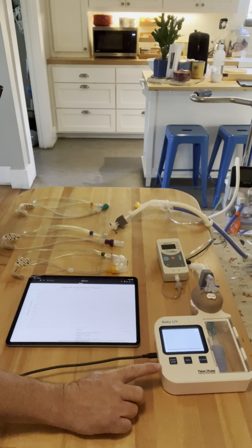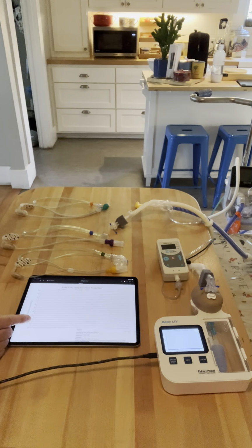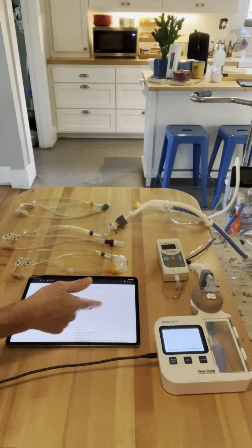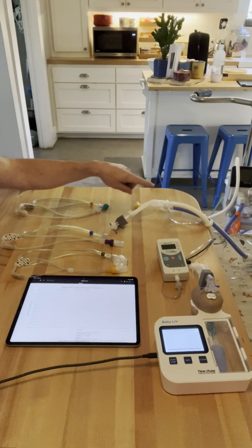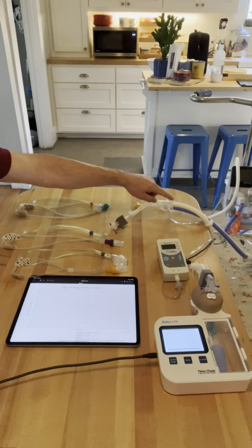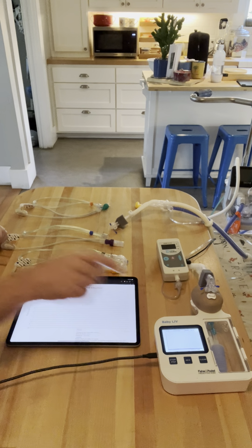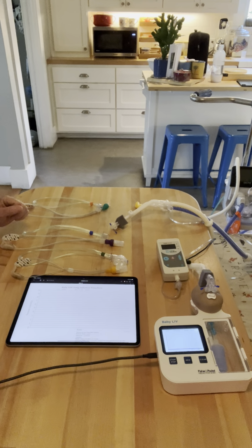I have my test baby lung here that's going to be reading pressure for us on the screen. On my iPad, these are Bluetooth together so that you can see the pressure yourself more effectively. I brought with me a manometer that measures actual bubble CPAP, since I'm using a bubble CPAP as my bias flow system. And that's going to read the pressure, obviously, on the circuits. So that will tell us what the pressure buildup is in the circuit. My baby Liv here will tell us the pressure buildup within the lung, and we're going to swap all of the interfaces as we go along and see how they test out.